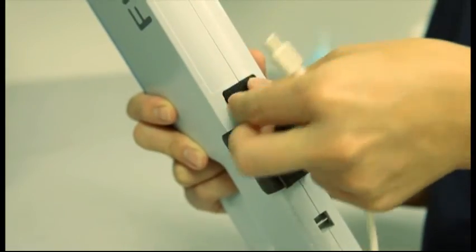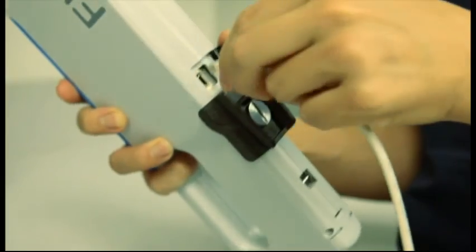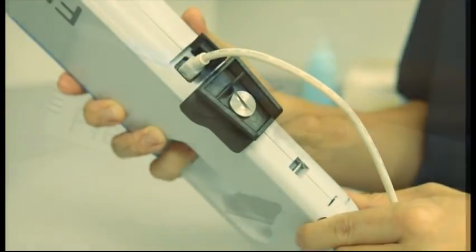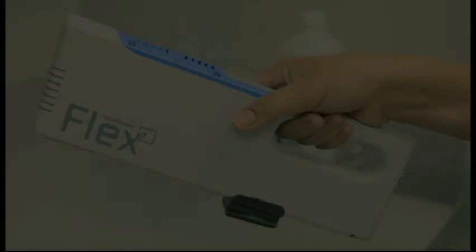Transfer captured images to your PC using the USB cable. No patient data is saved during the capture of the image. Only a serialized unique file name is added to allow filing of the images.